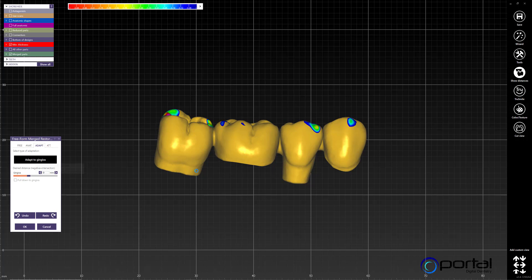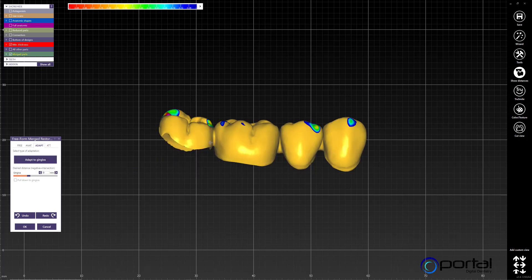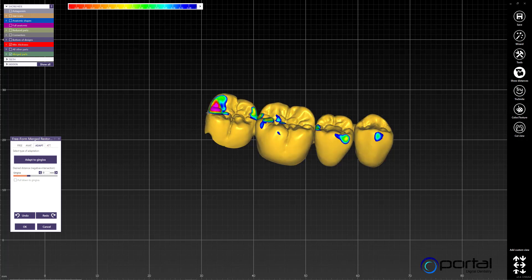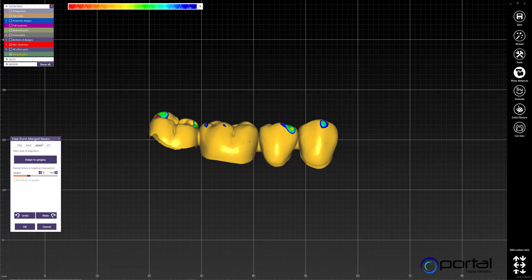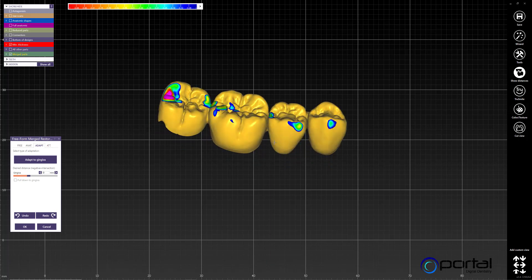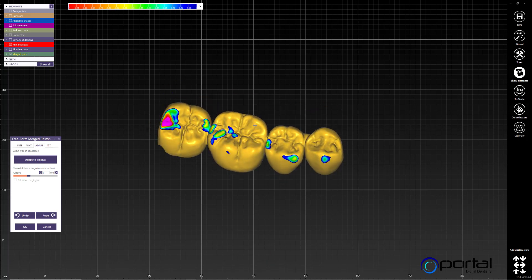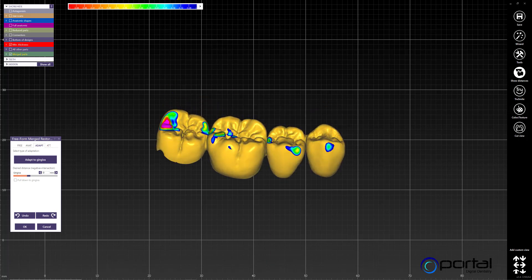With that, we can do the adaptations to the gingiva, which will cut out all the extra material, and continue forward. This technique only works if you want to add an extra unit to the distal-most or mesial-most position — you can't add one in the middle. That would require free-forming into shape, which can be tedious, and that's pretty much it.